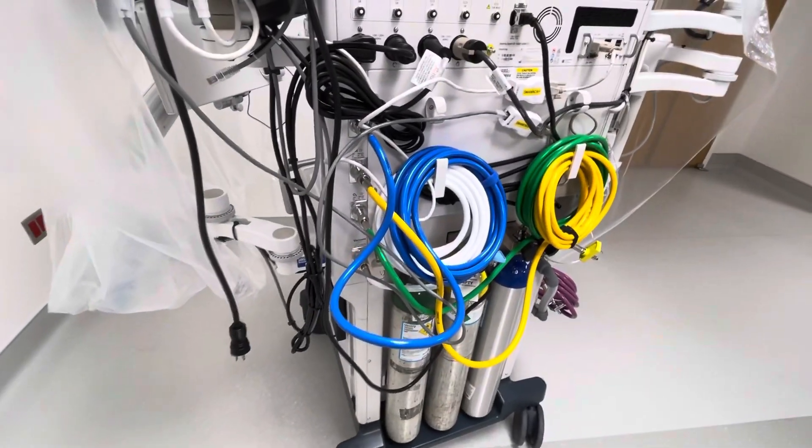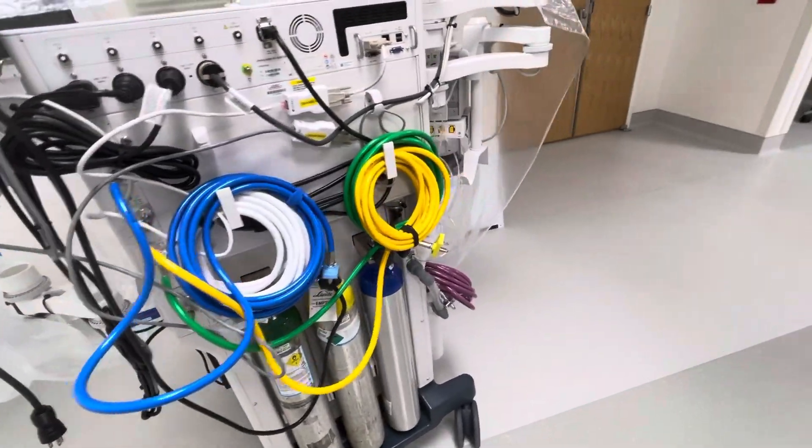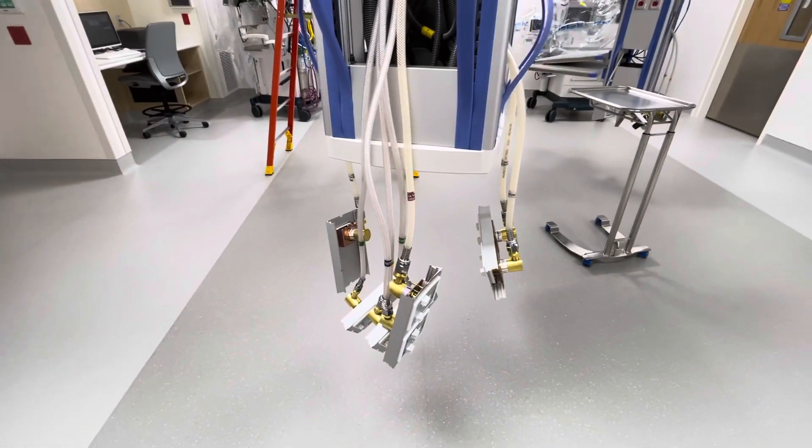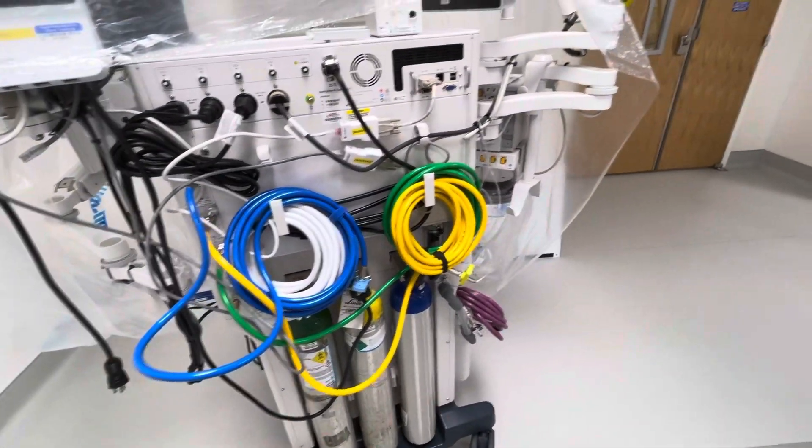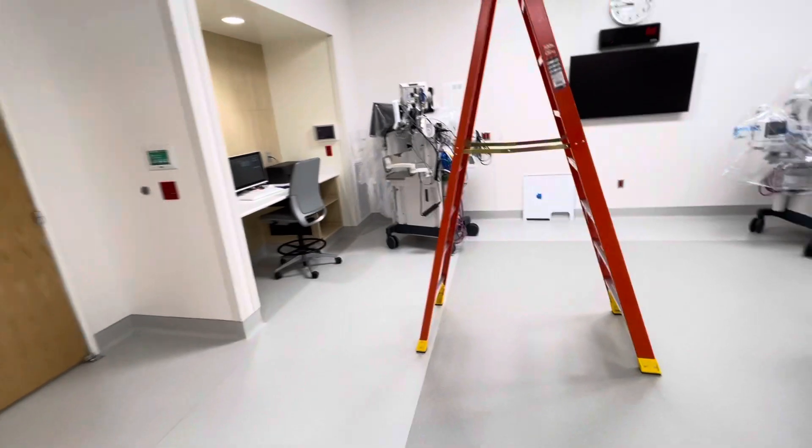We want to be able to isolate that and disconnect this if that is the case. As far as this is holding right there, we want to make sure this is holding. If they start plugging this machine in there and start testing and it starts leaking, you know it's the machine.